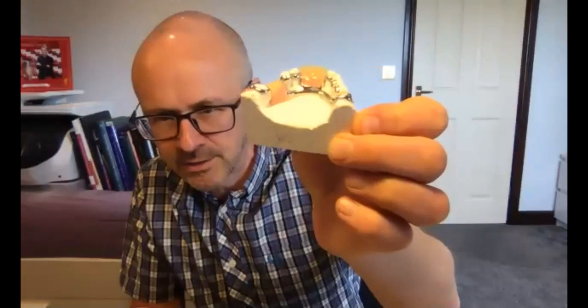How do you approach chrome dentures for moderate to severe perio cases? These chrome dentures using the Scandinavian approach — all open design — are brilliant for perio cases. The framework sits well above the gingival margin allowing saliva flow into that area. They're absolutely terrific for these sorts of perio cases.